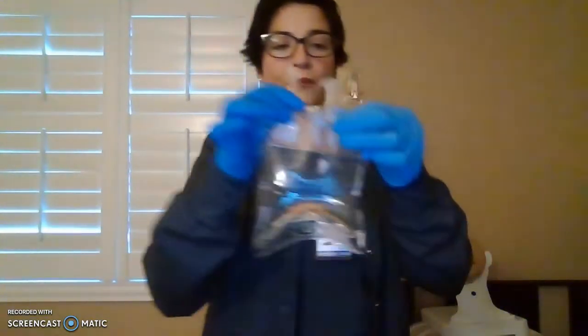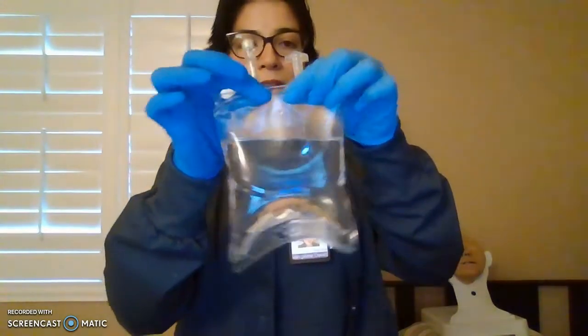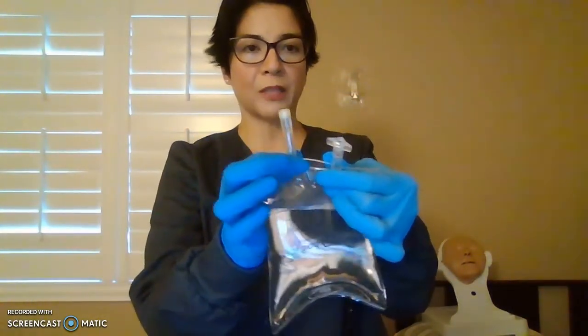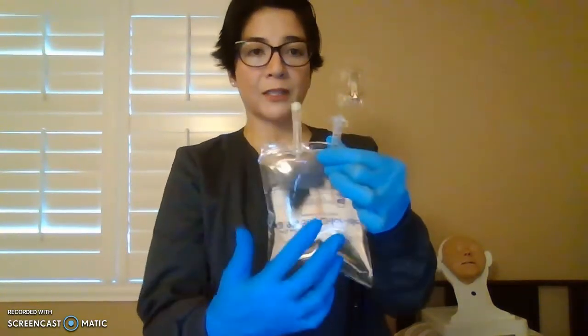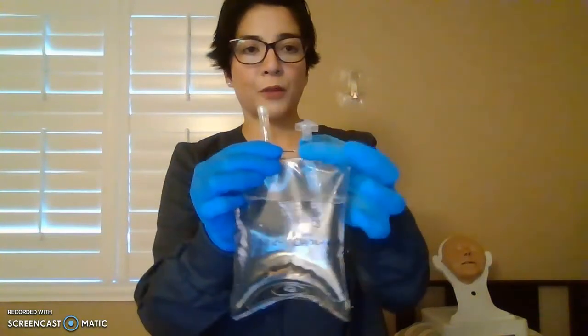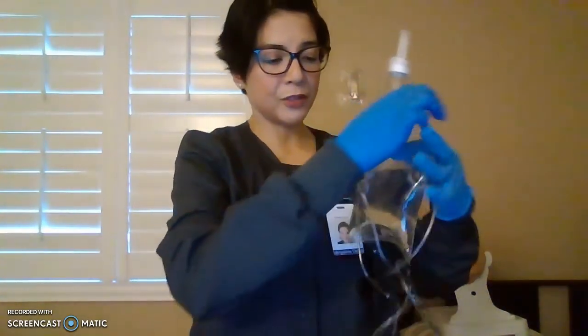Okay, and of course, just to show you real quick your fluid. Let's say this is normal saline, 1,000 mL. So we will not be using this port. This is for extra medication that needs to be mixed, if needed, into your fluid. And this is for the patient. This is what we will be using. So, all right, let's start. We have our 38 drops per minute to be infused to your patient.